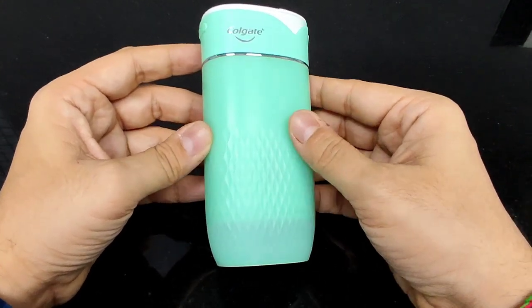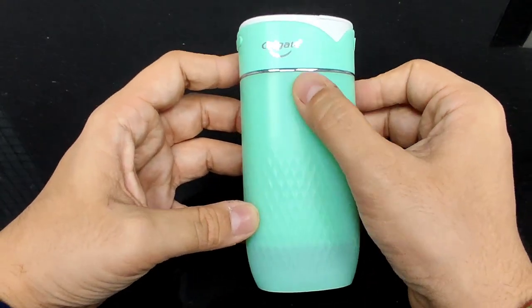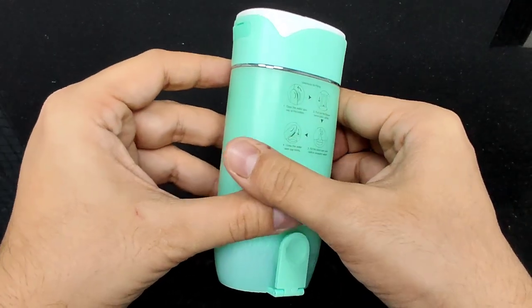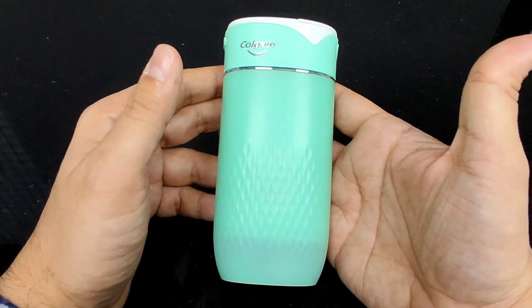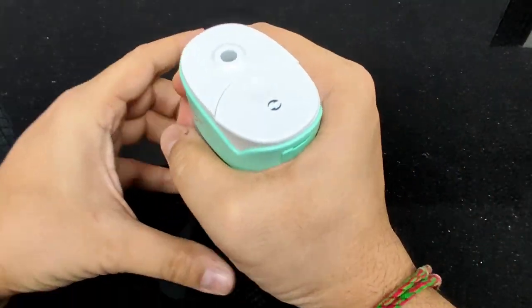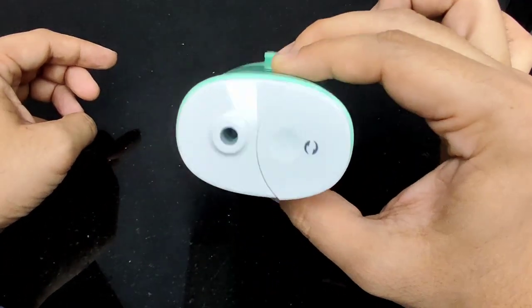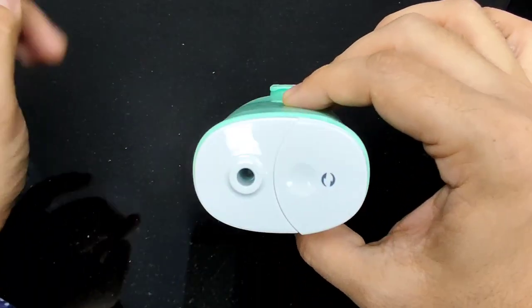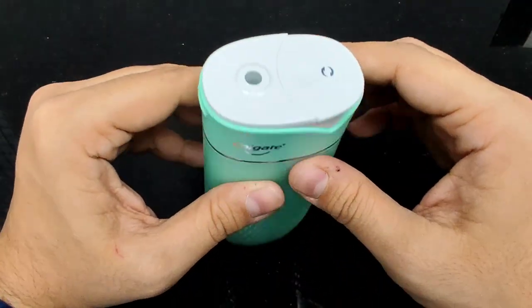Doesn't it look good? It feels good too. This pattern has a matte finish, a gloss finish, and the Colgate hologram on it — very clean cut, beautiful, chic design, and the color is extremely elegant. I also love the ovoid form, so I can grasp it with my full palm or very conveniently hold it with just my fingertips.